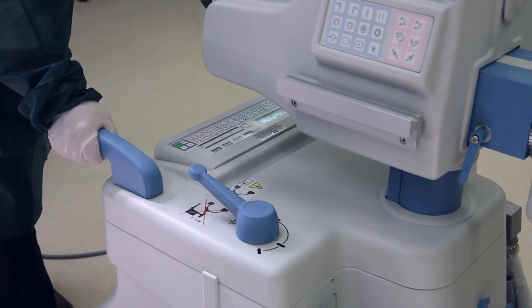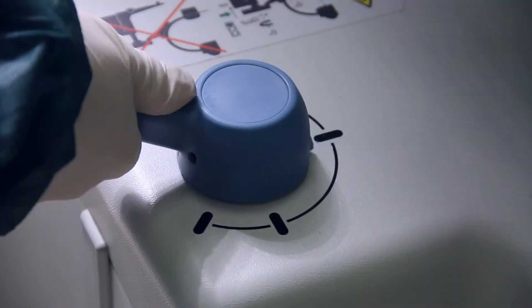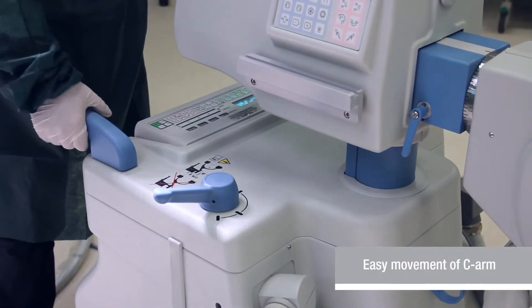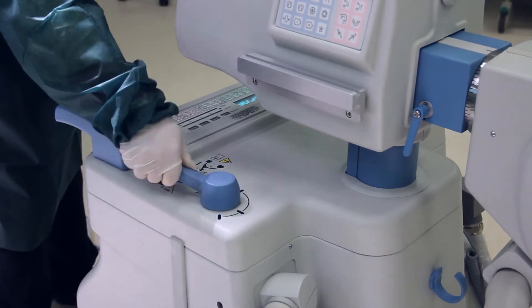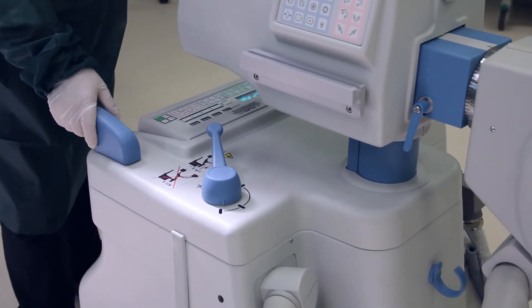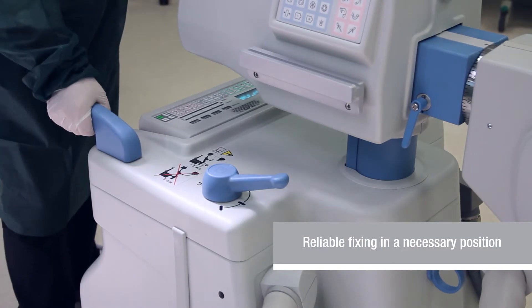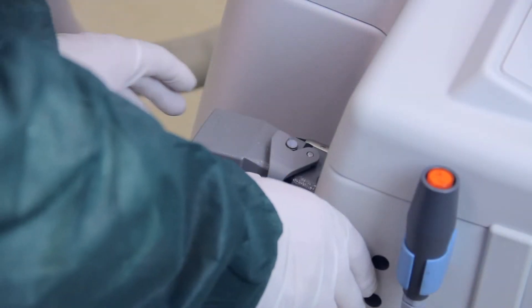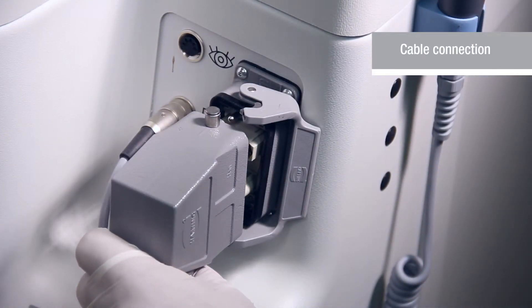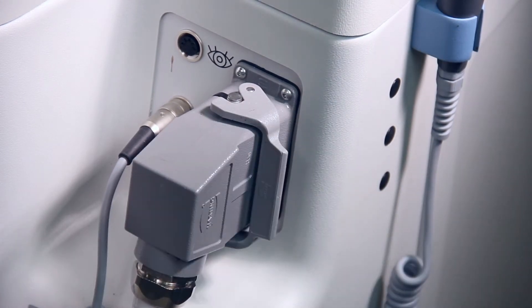It is easy to move the unit from one operating room to another due to a special lever that controls wheel turns and fixation of the unit position. The wheels may turn in any direction. The arch should be taken off the trolley with monitors during transportation. Reliable fixation of the connecting cable ensures uninterrupted work of the unit.